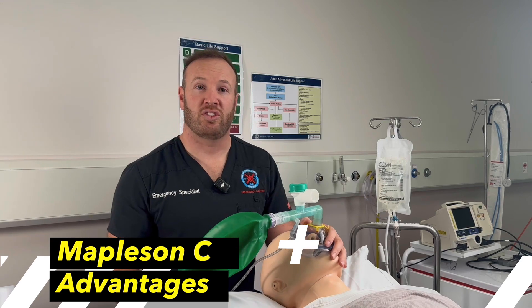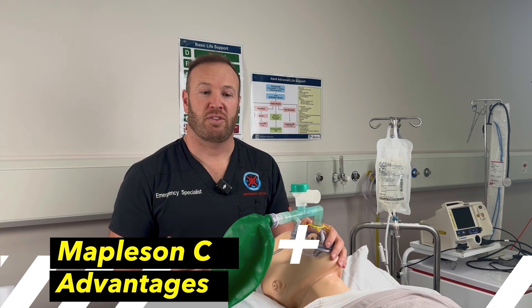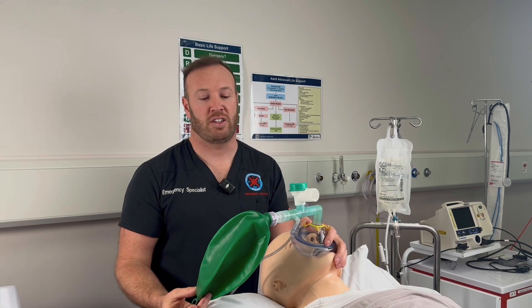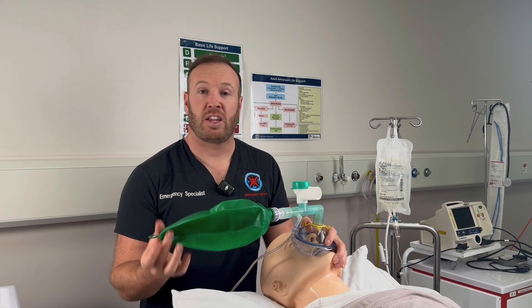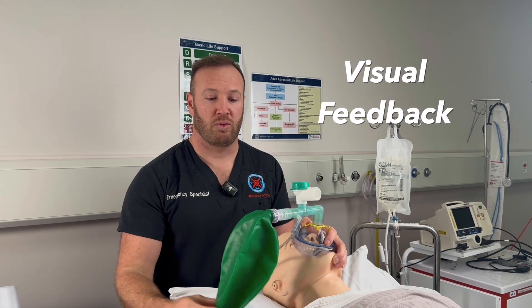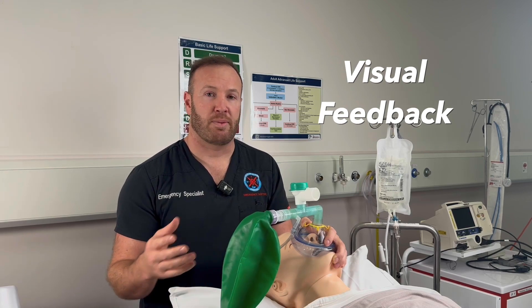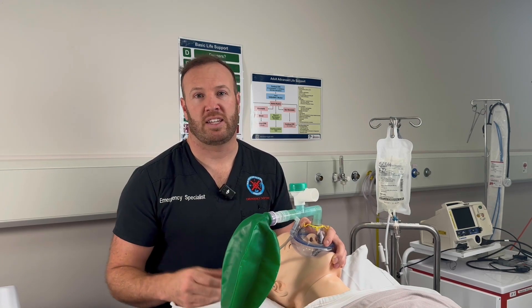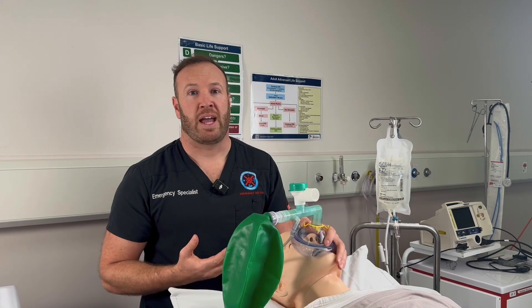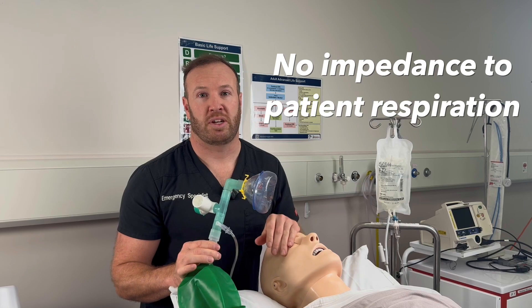Before we look at how to use the circuit, let's think about some of the advantages and disadvantages compared to a self-inflating bag. One of the biggest advantages for the spontaneously breathing patient is that we can see a direct visual representation of their breathing. We can see their respiratory rate by how frequently the bag is inflating and deflating, and we can also see how much air they're moving by the amount the bag extends. The other advantage is that, unlike the self-inflating bag, there are no valves in this circuit, so there's no impedance to the patient's inspiration or expiration.